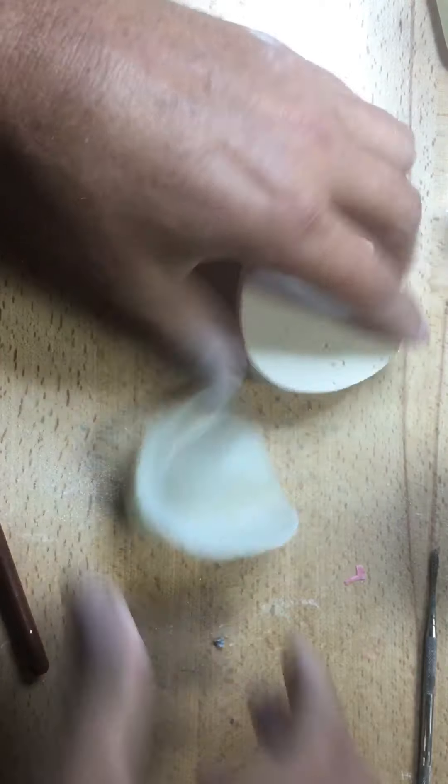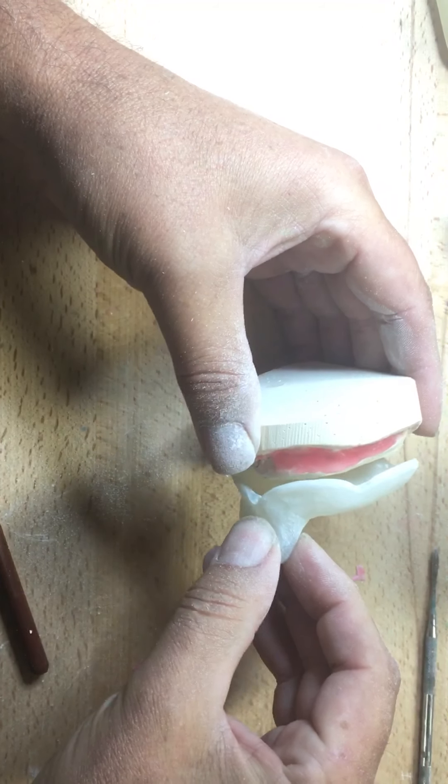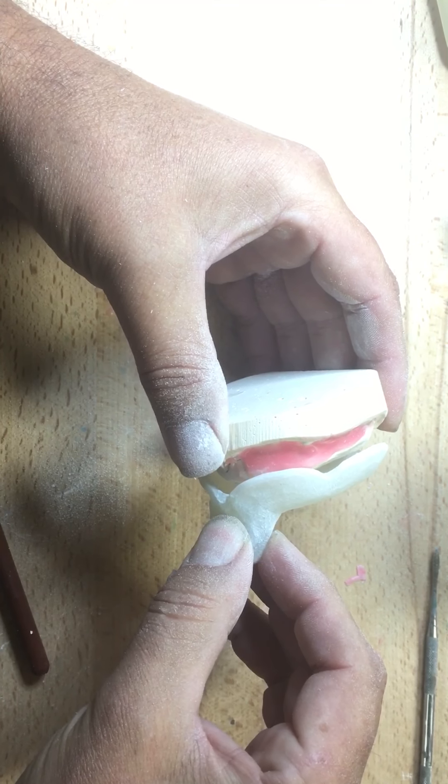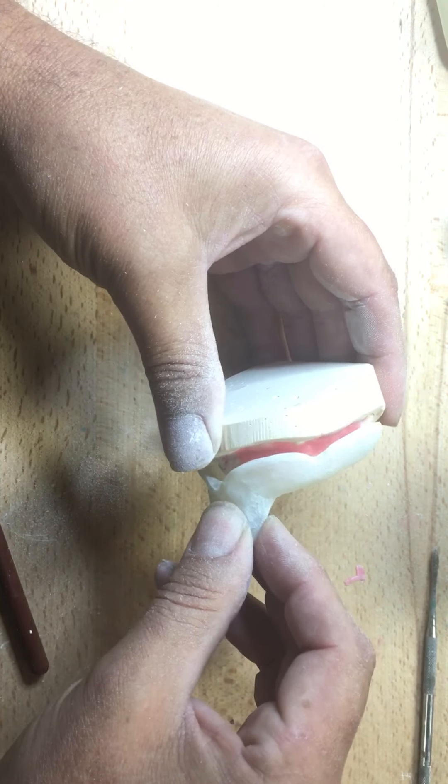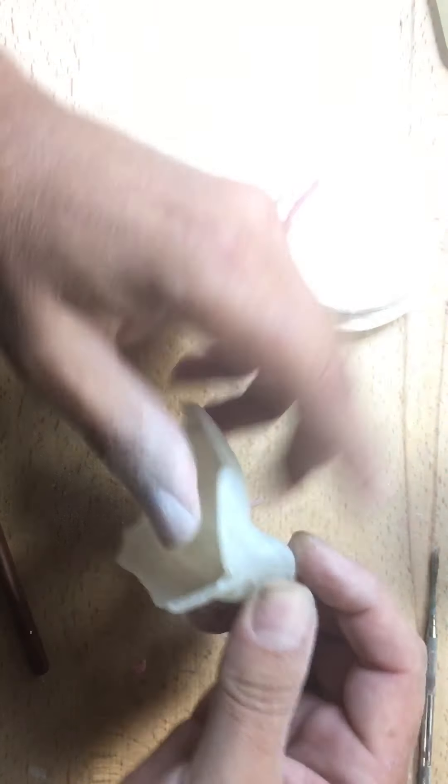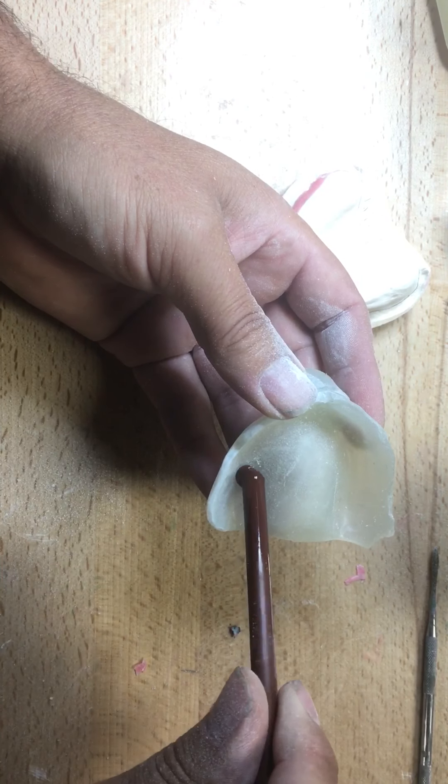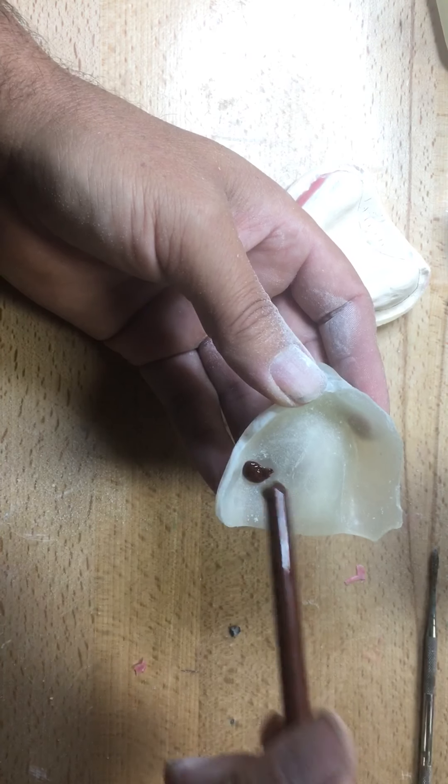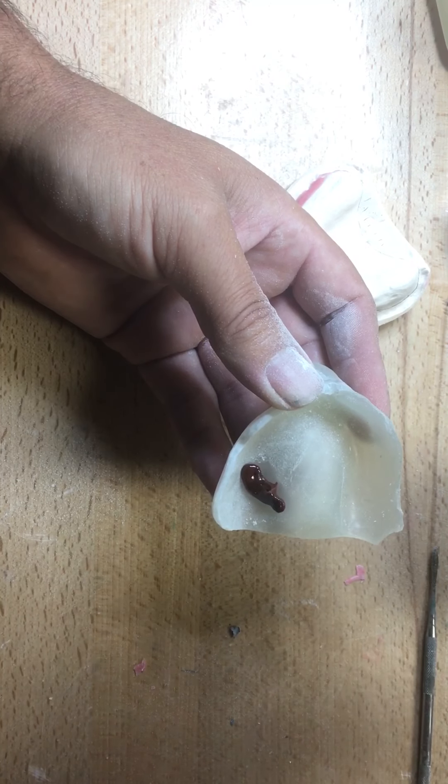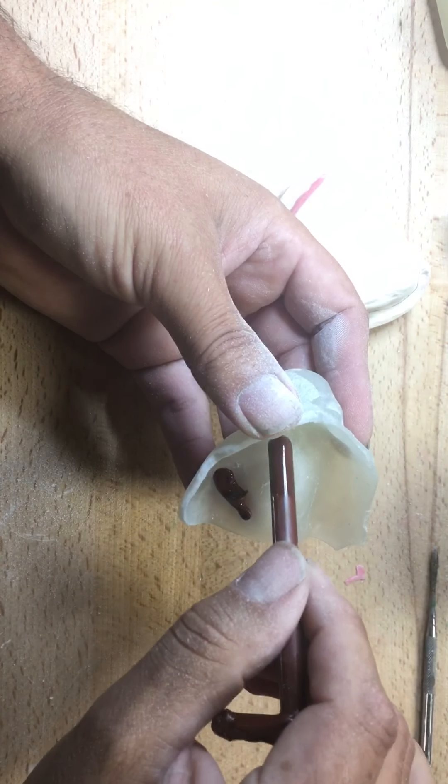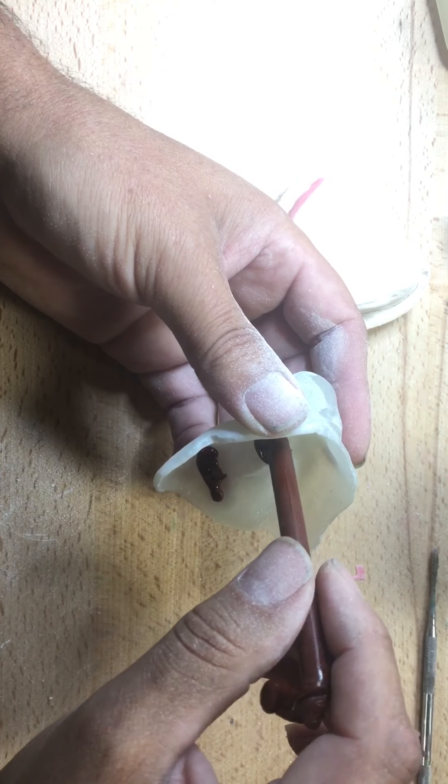Now, what's going to happen here is I was telling you, even though, depending on how much wax, even if I had, you know, five layers of wax on here, the practitioner may only get the tray this far in the patient's mouth. Maybe even this far. Well, that's like 30 sheets of wax. Or they have a strong hand and they overextend the impression.